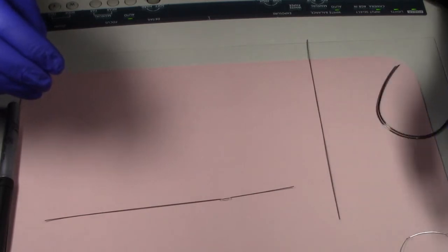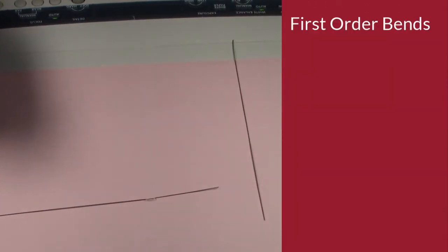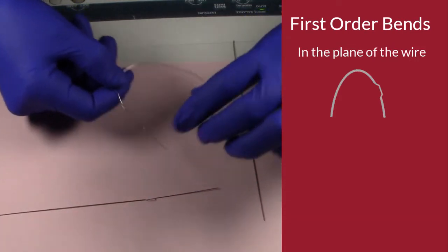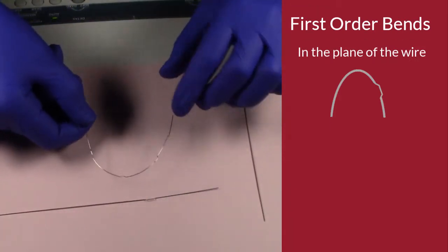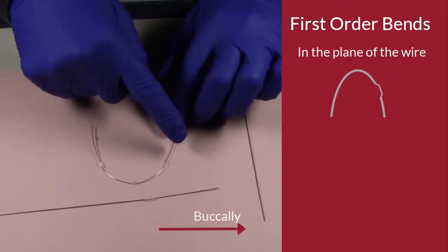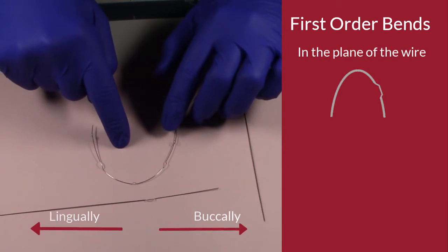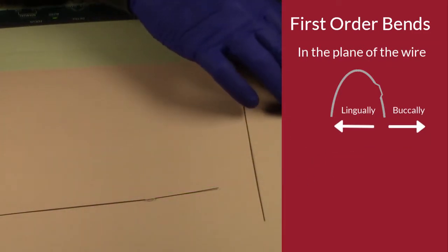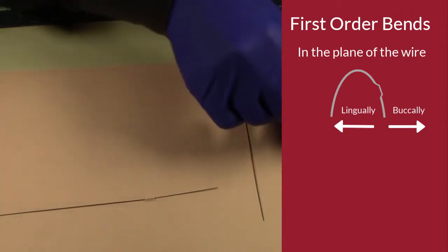So we have what we call first order bends. And those first order bends are basically keeping a bend within the same plane of the wire, but we're going to move the tooth either buccally or lingually. So that's a first order bend. So how do we create a first order bend? Let's talk about the buccal and the lingual bends, the first order bending.